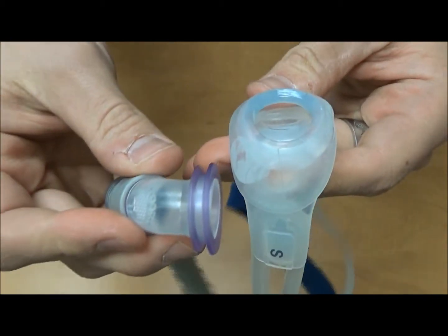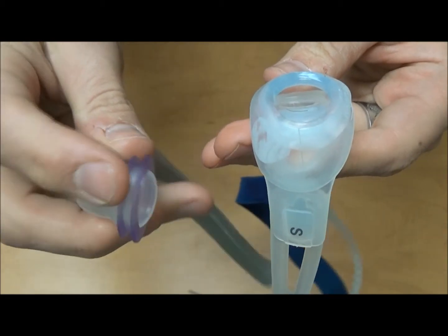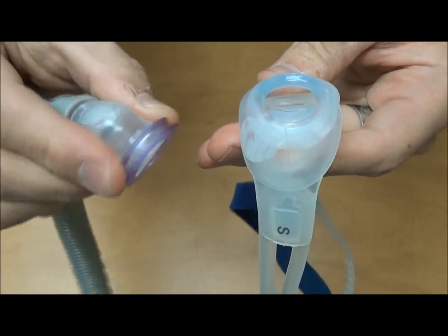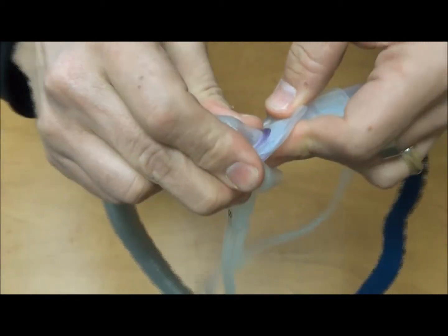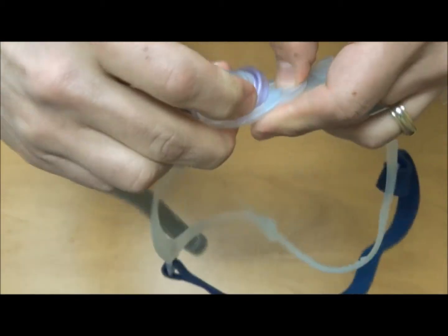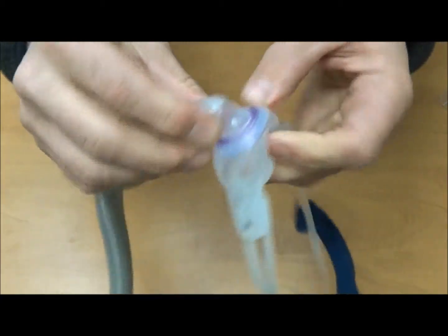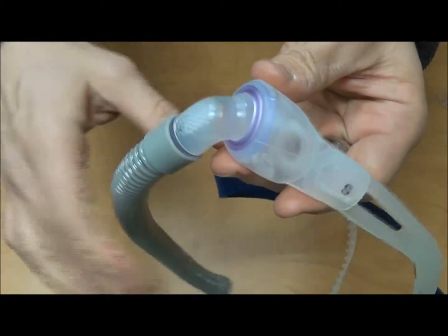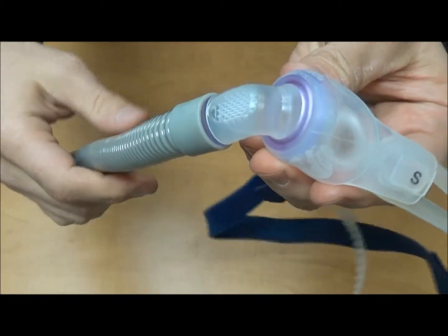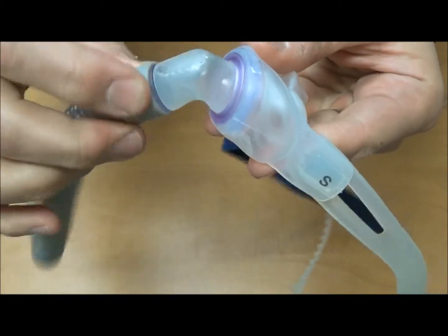We're going to take the tubing. It has this pink, pinkish frame, and we're going to slip this inside that small size pillow. It's a bit of a bear at times, but it does get in there nice and firm. Rotates like it should, floats like it should.